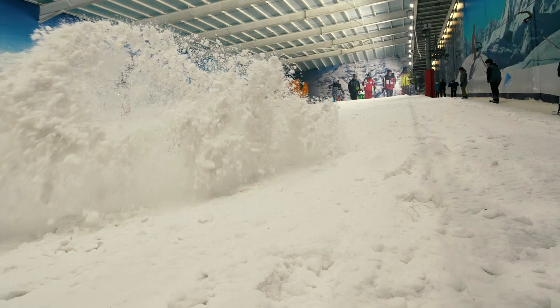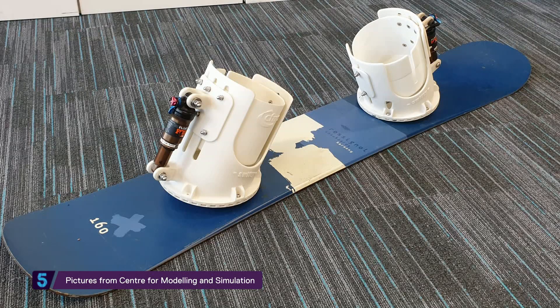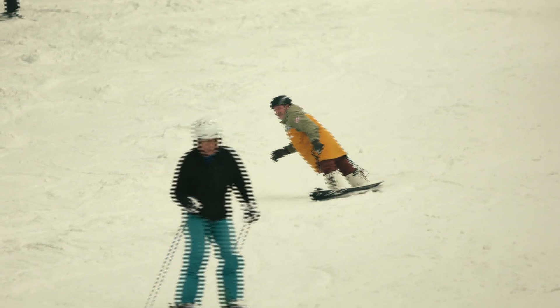So these are the first 3D-printed bindings for an athlete who is a double amputee above the knees. The revolutionary thing is that we have used the same techniques that we employ for designing airplane wings. Anyone with a particular problem can benefit from the same range of digital engineering expertise.